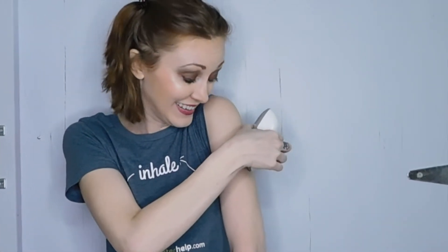Oh my god. Whoa, that was intense. It was like somebody punched me with a key in their knuckles. It doesn't hurt though. I'm okay. Don't worry. Now I just throw this away? Seems wasteful, but okay.